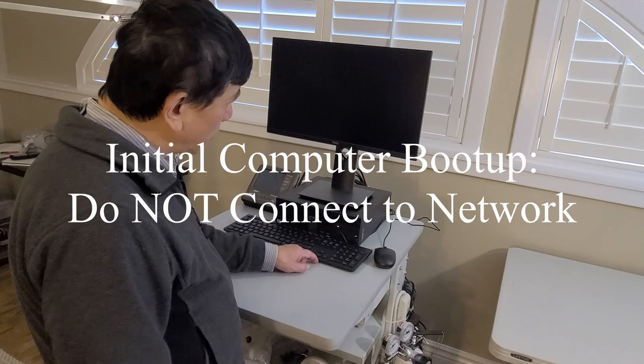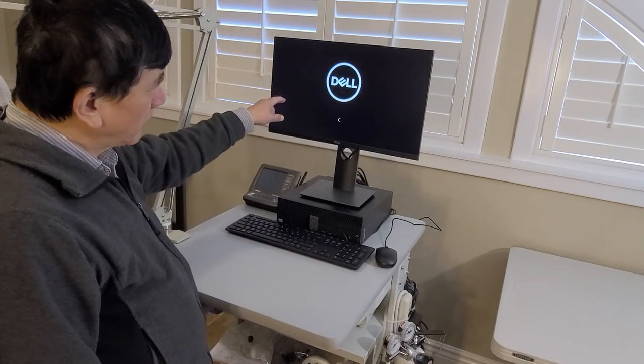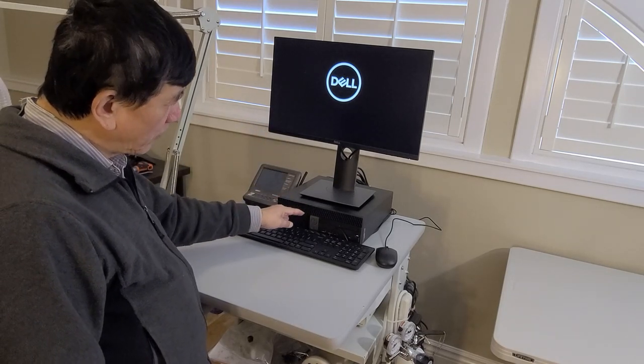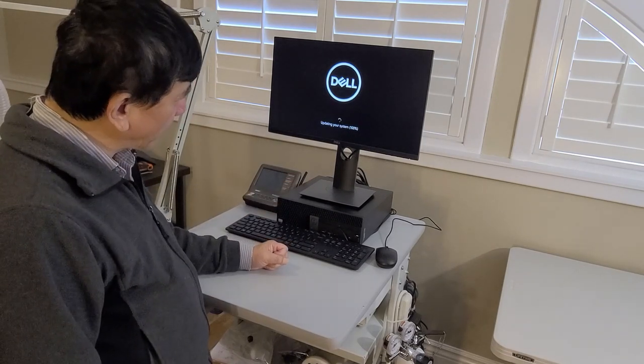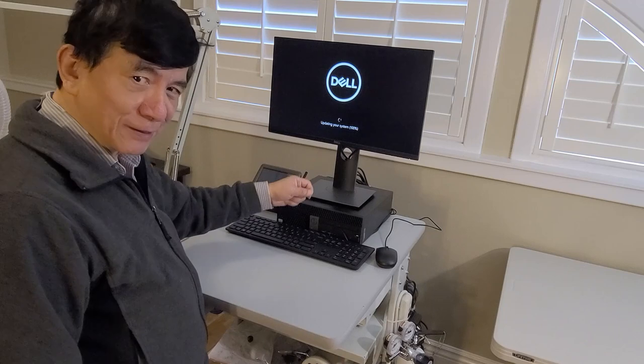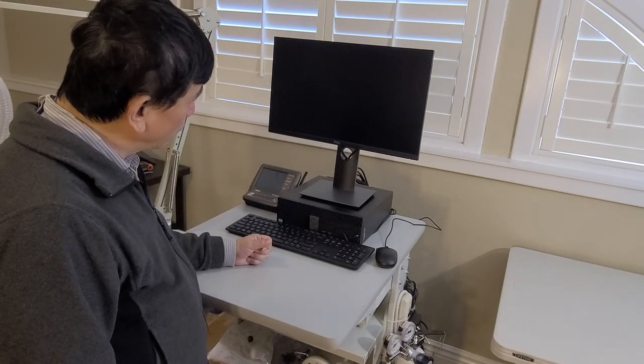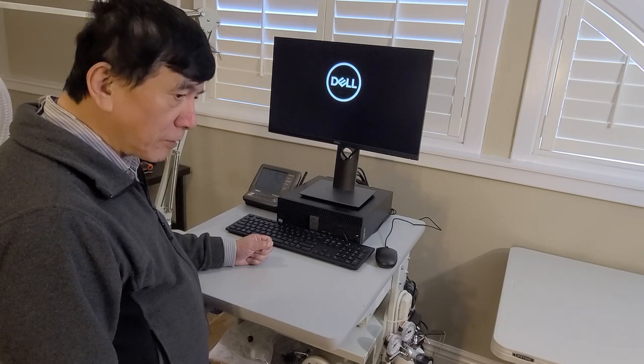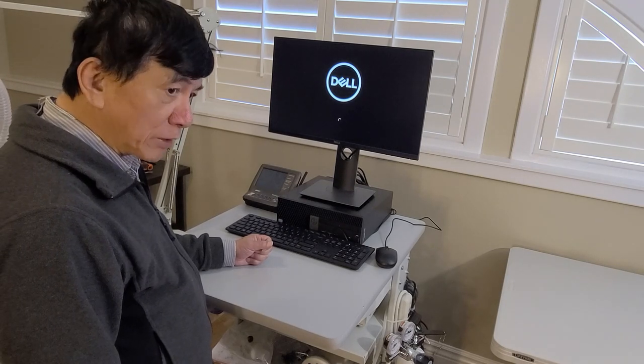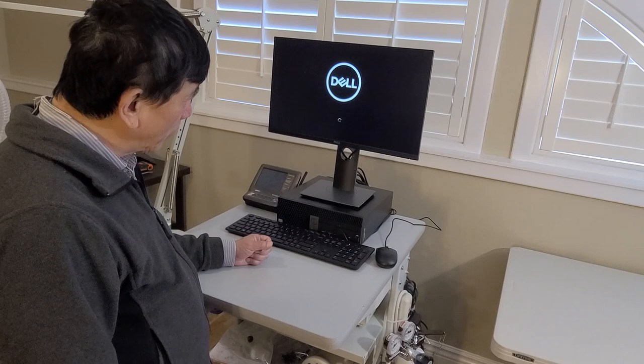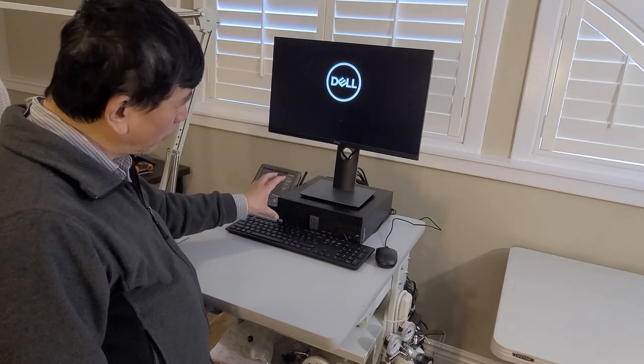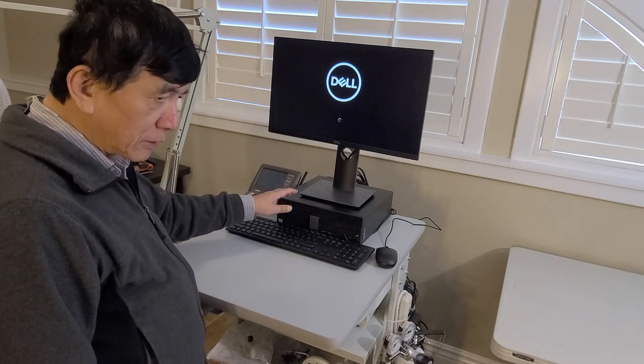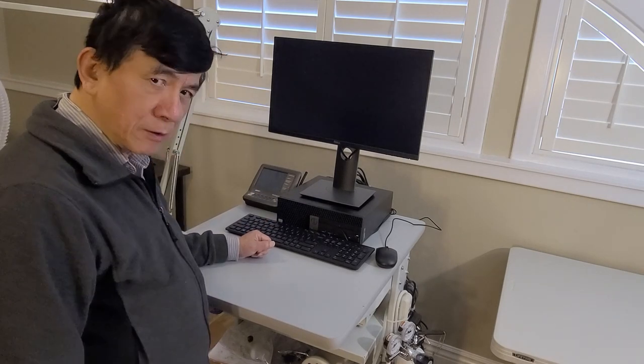Then we need to turn on the computer. If the monitor is connected to this computer for the first time, Windows will change the resolution to the maximum resolution. In this case, it's 1920 by 1080. Then you need to set it back to be 1024 for regular exercises.